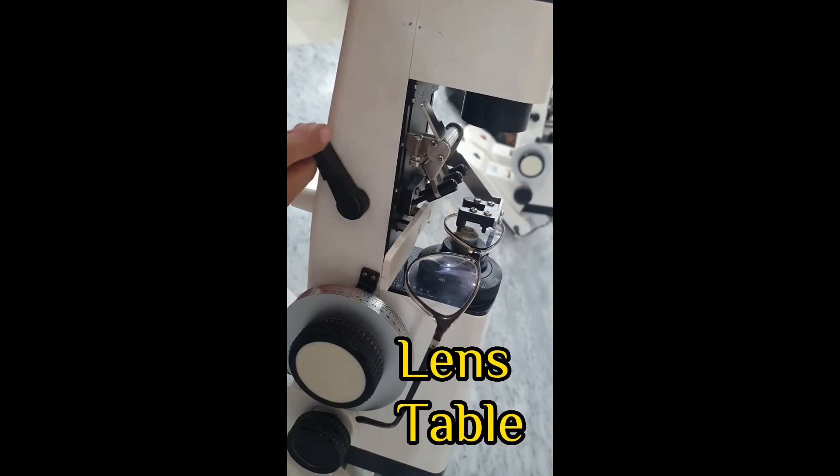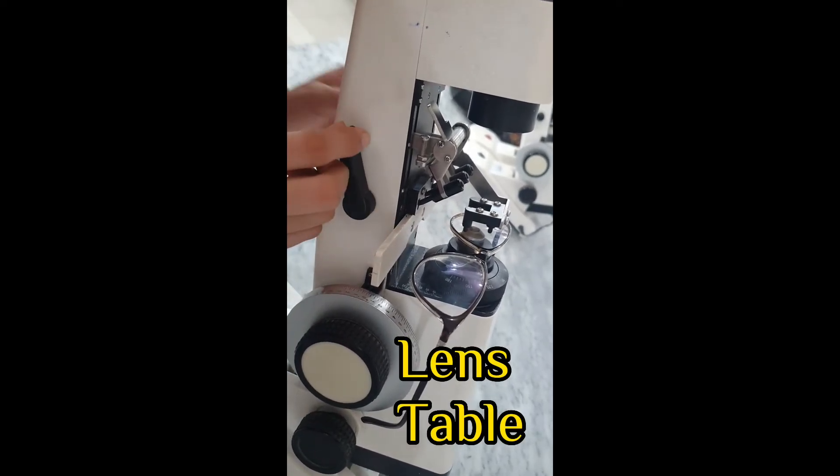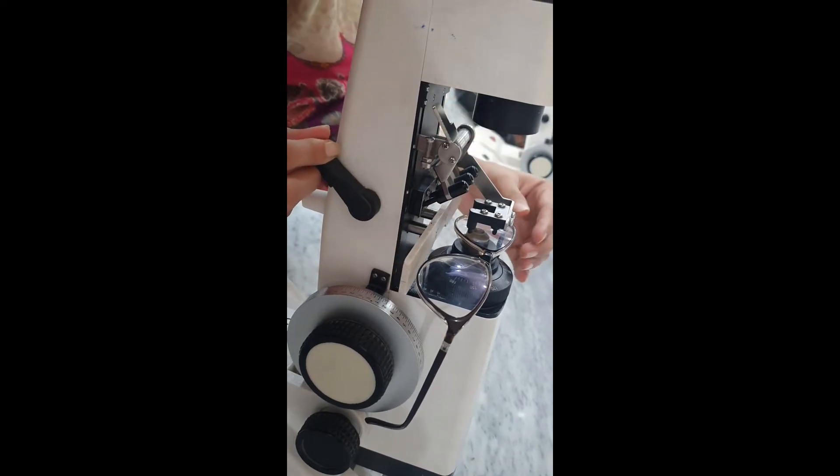Knob for adjusting the lens table. Lens table to support the lens that is being measured.